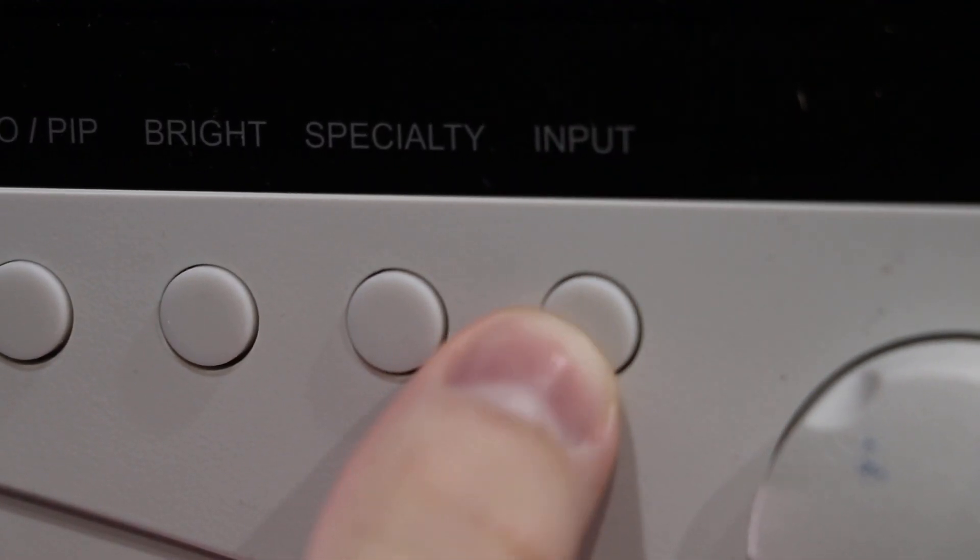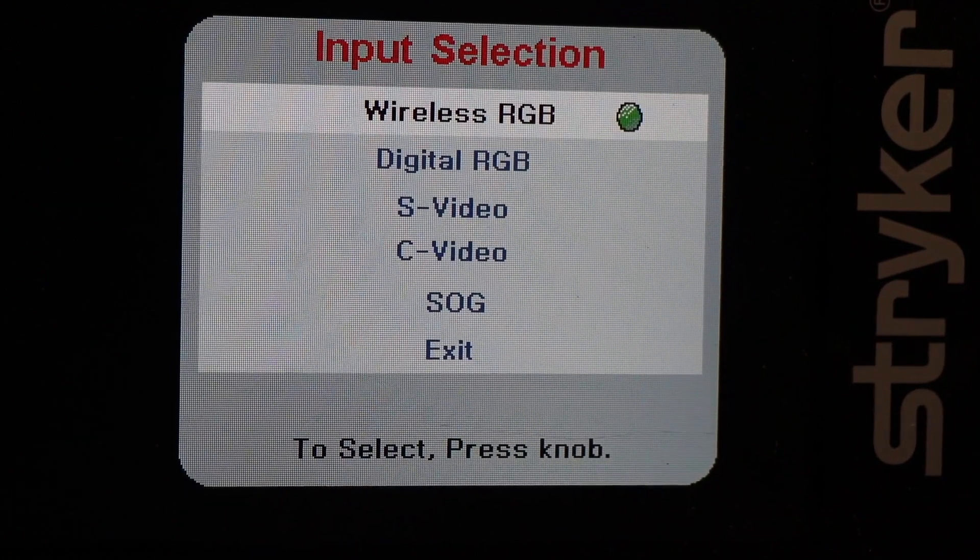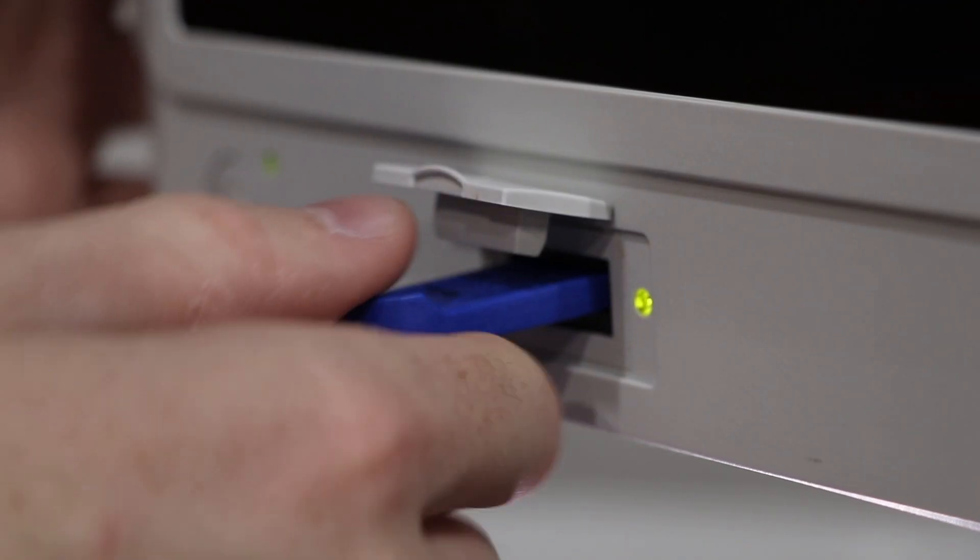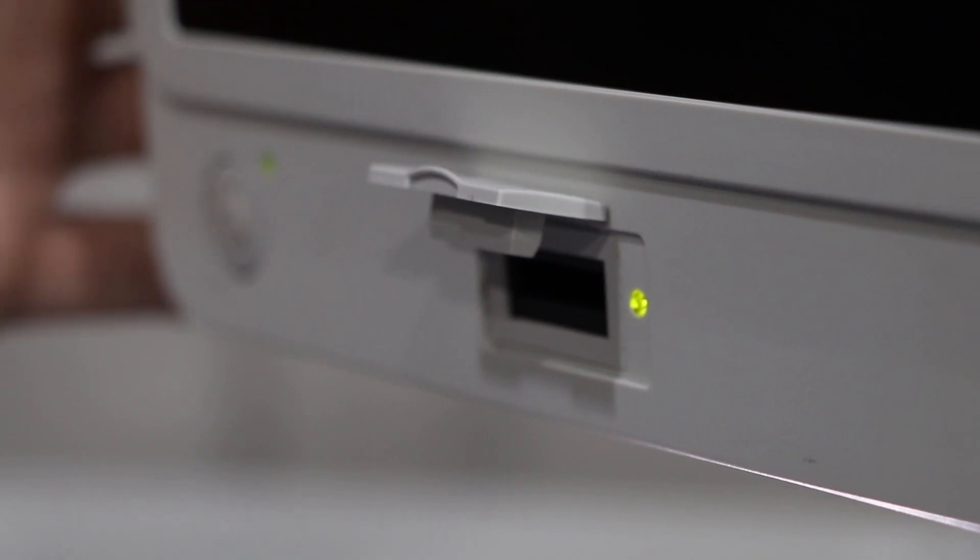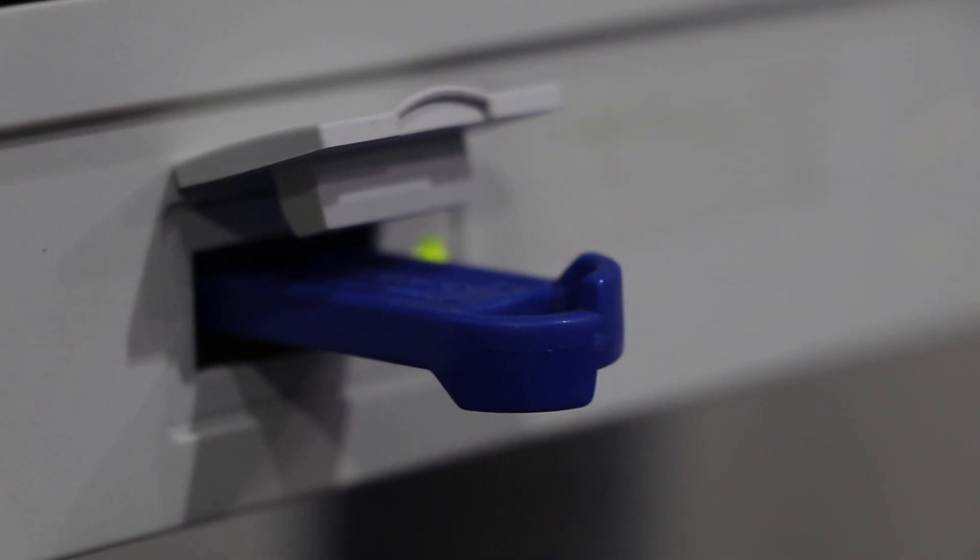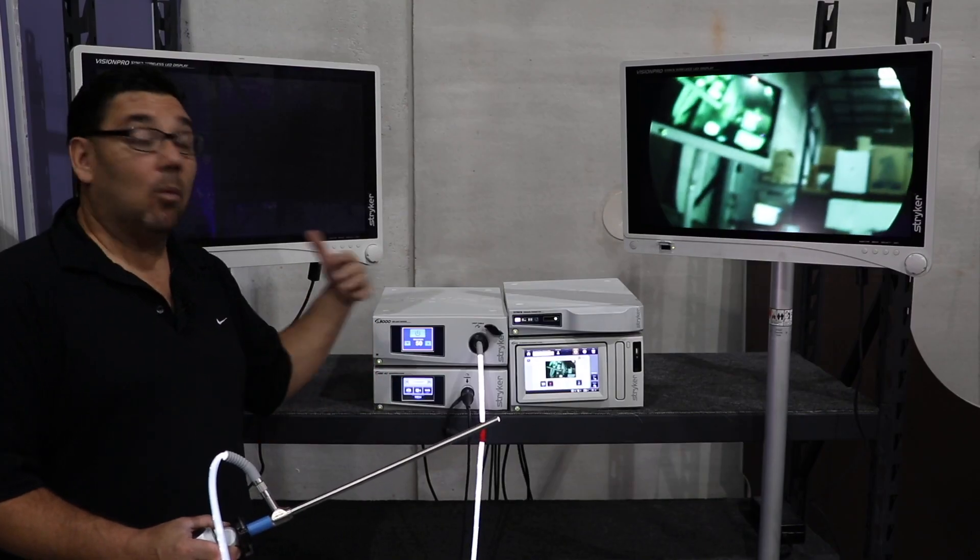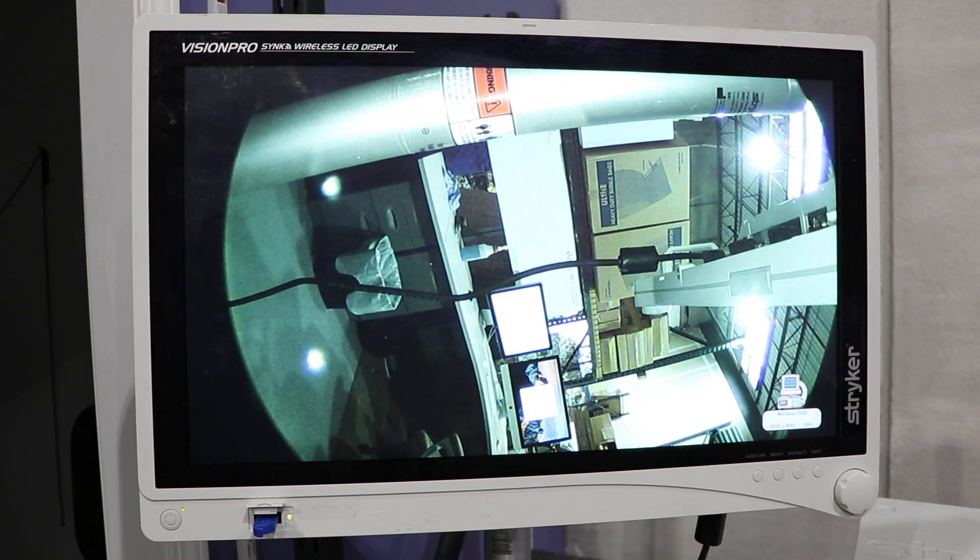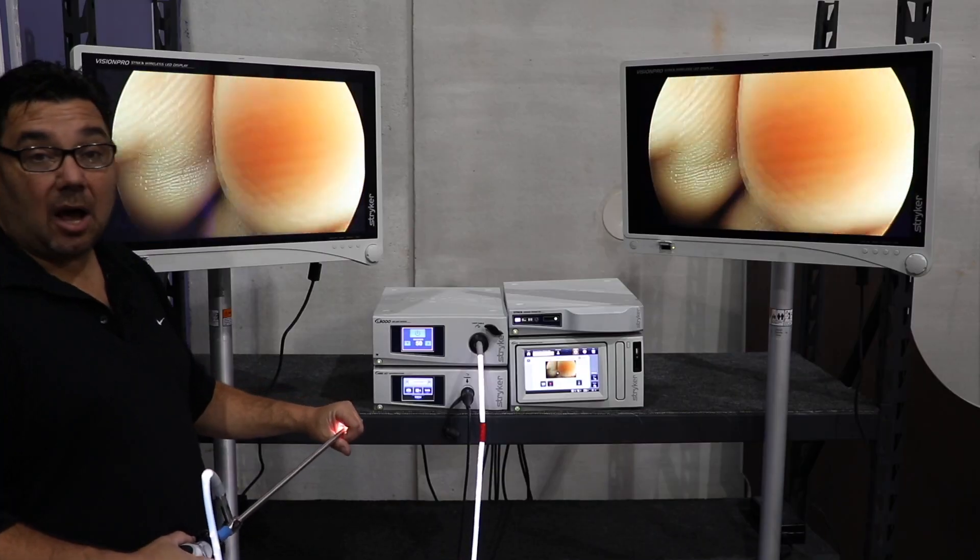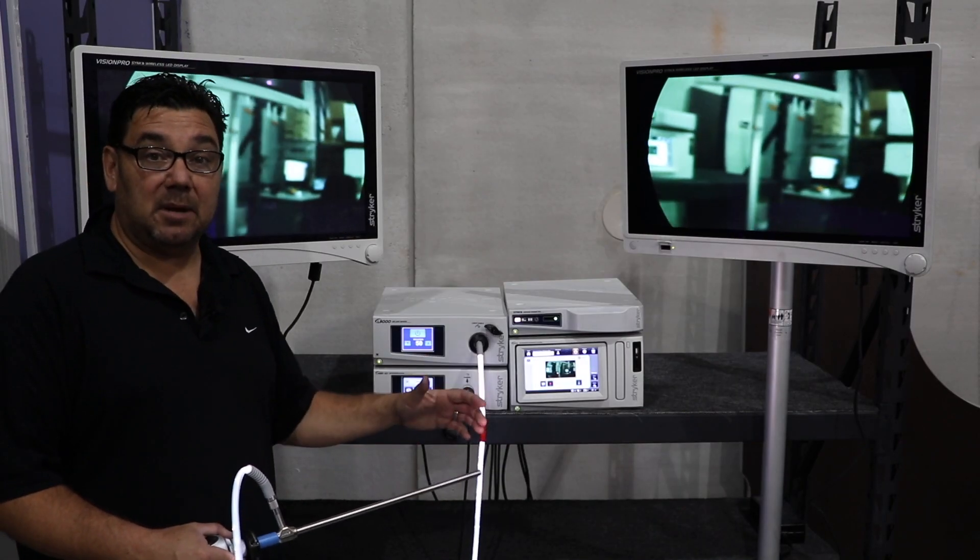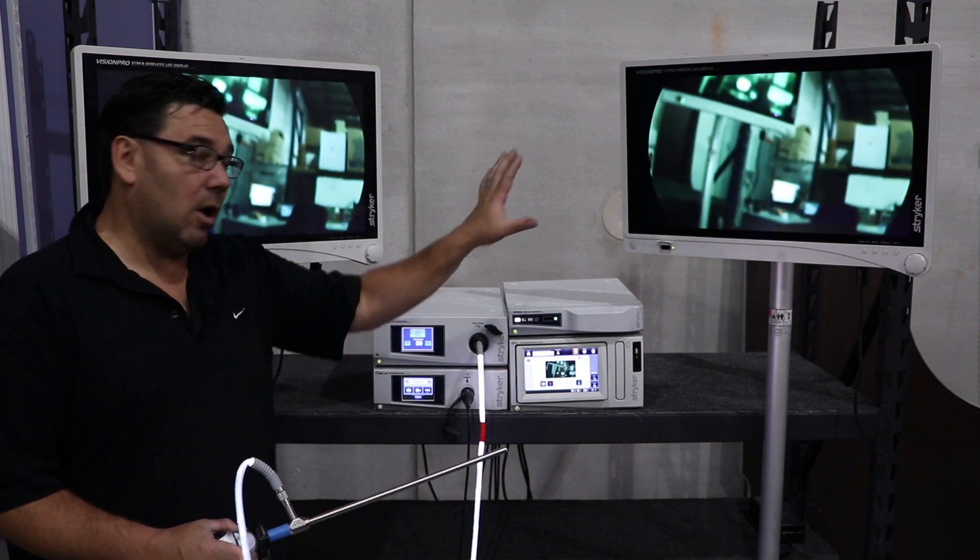Very important: make sure that your input on the monitor is set to wireless RGB. You can also take the key to another monitor and plug in multiple monitors into one transmitter. Once it connects, you'll have the image on both screens. So you have the capability to transmit to multiple monitors, not just one.